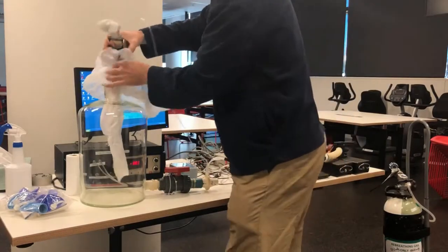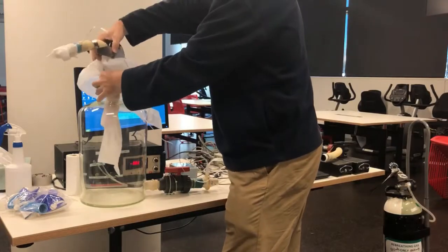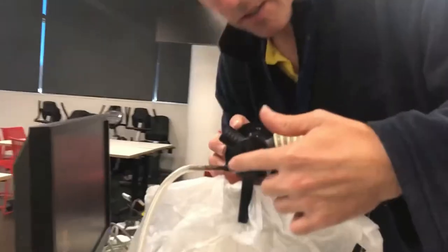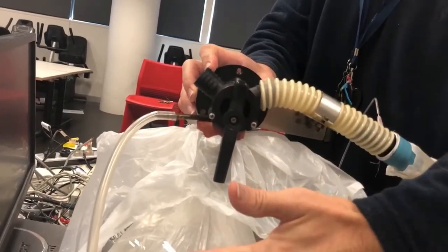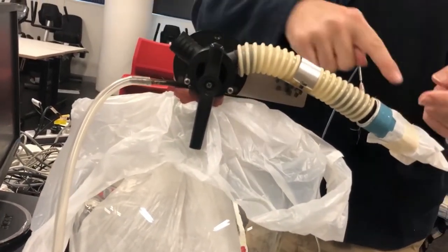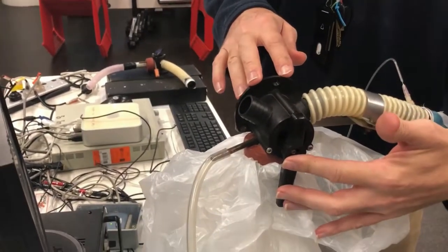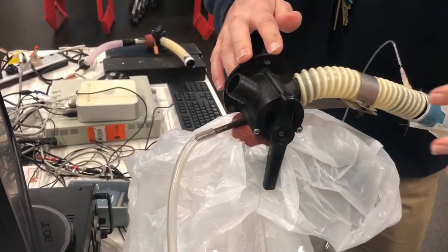What I do is: when the bag is flat I try to have it just touch the bottom of the tank, because that's a fixed volume and that's roughly the size we need. The long arm of this valve here points toward the part that's blocked off. There are three inlets: the mouthpiece, this external nozzle, and the nozzle that goes down into the bag. You can turn one off at a time, and the long axis of the handle points to the one currently turned off.